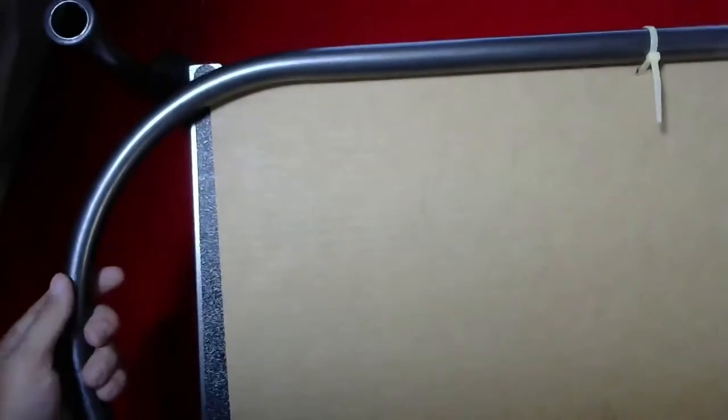Hi, Steve here from CSP Medical. Today, another quick video showing you a product that is a step stool. It's an 8-inch high step stool, so that is the height, and it does have a handle that actually clips in.